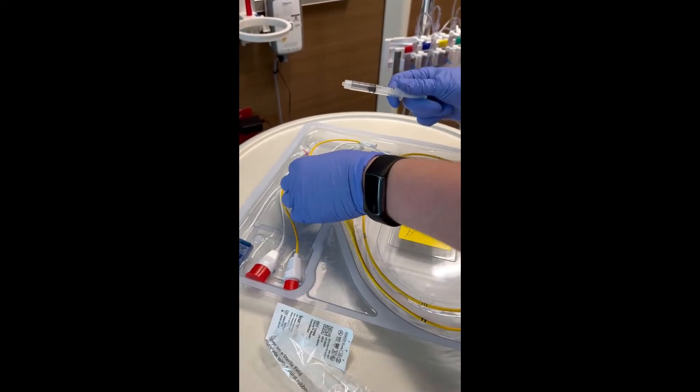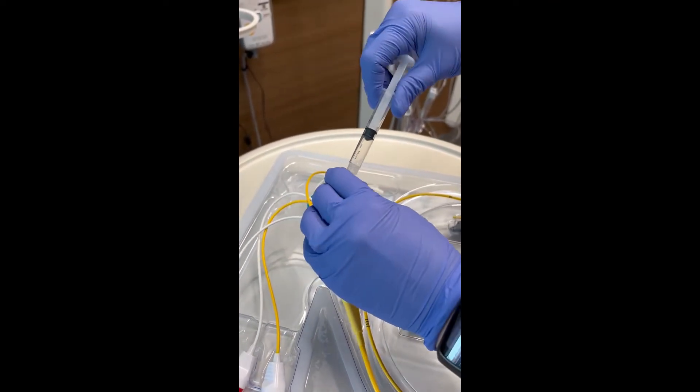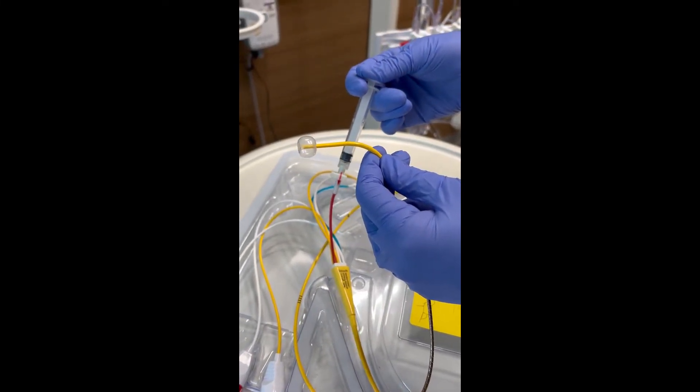And I'm just going to hook it up to the port just so you guys can see the balloon, and push it in. And there's your balloon.